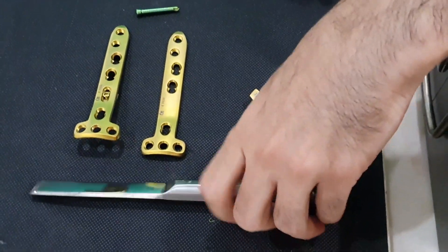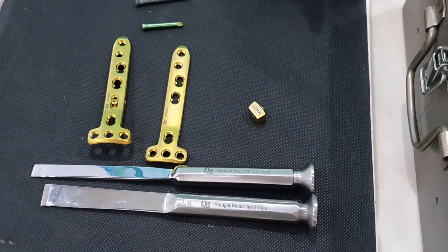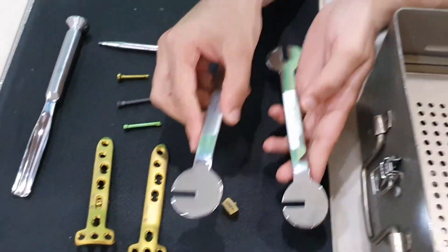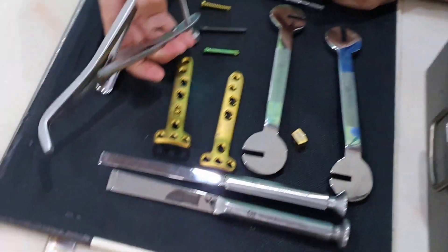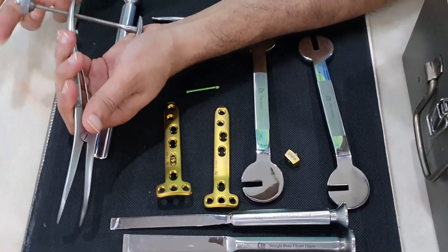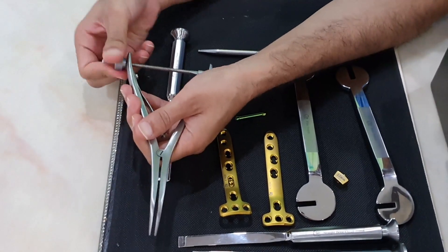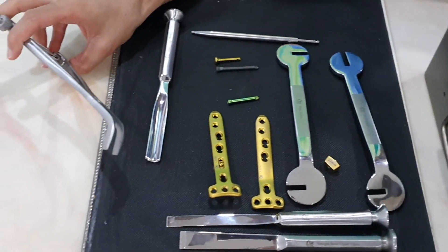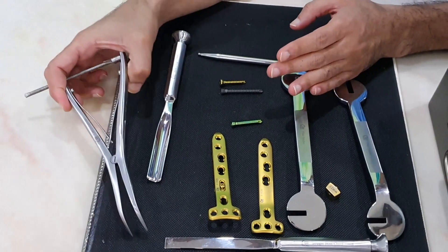The set comes with a nice system including an osteotomy expander, chisels and osteotomes for performing the osteotomy, and a gouge if you want to take a bone graft. A plate bender is included for bending the plate. To expand the osteotomy there is a lamina spreader — you can expand the osteotomy, adjust the amount of opening, fix it in position, and then release the spreader. Bone graft can be used alongside the lamina spreader.